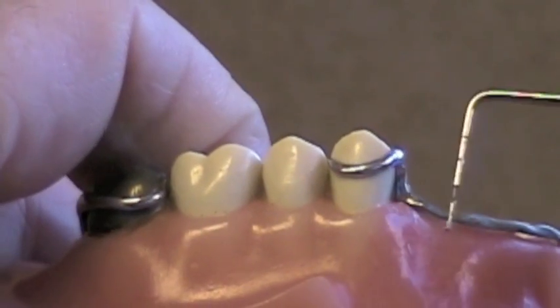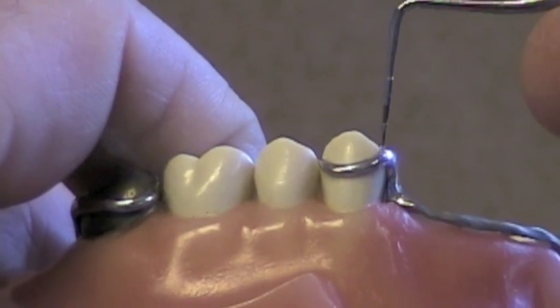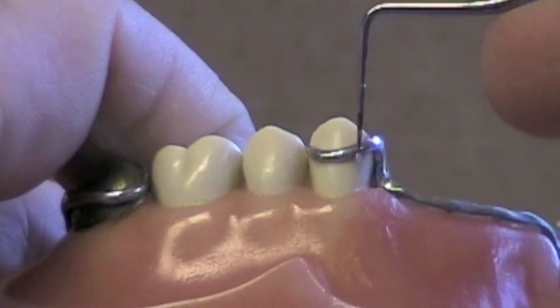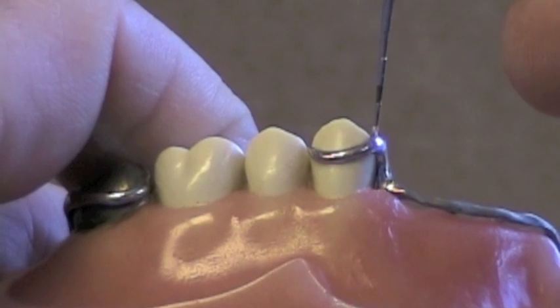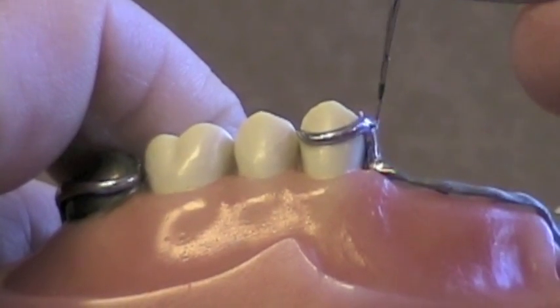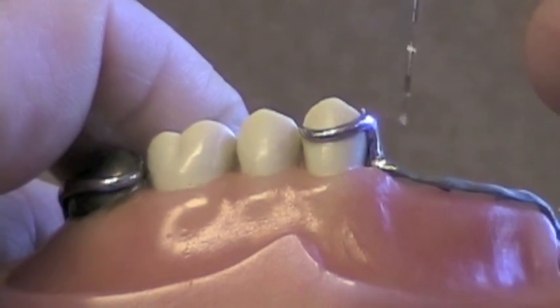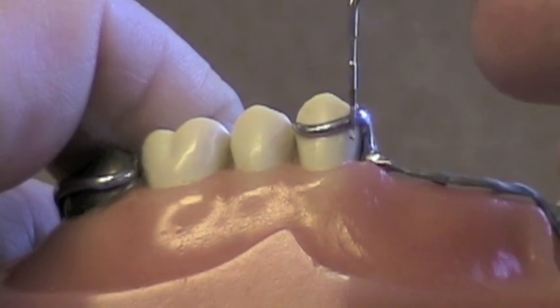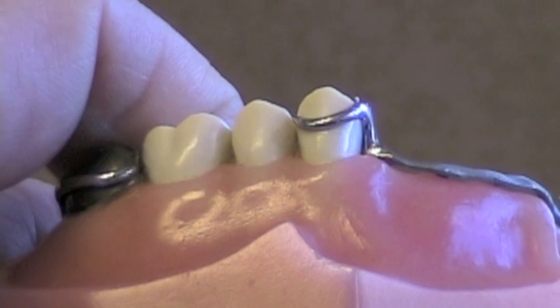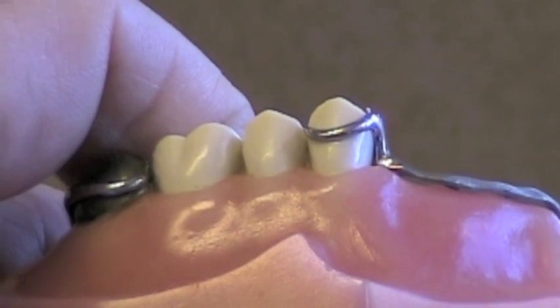There are some other cases where we might move a guiding plane around a surface. In this case in the maxillary arch on the first premolar, we've got a clasp beginning to come off the minor connector that starts high on the buccal. If we can move the height of contour lower on this tooth, we can place the clasp lower and it won't show as much — it'll look much better. So in anterior preparations, we might go around the mesial buccal corner to place the clasp lower for aesthetic reasons.